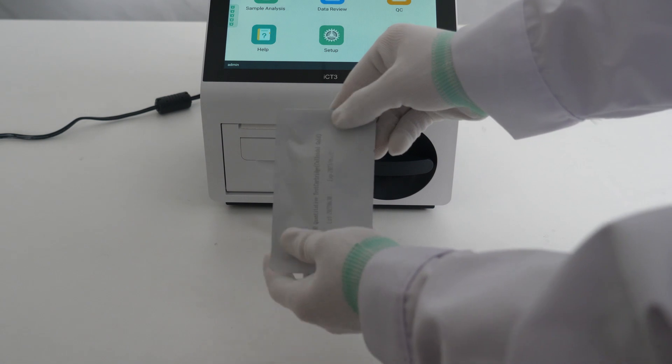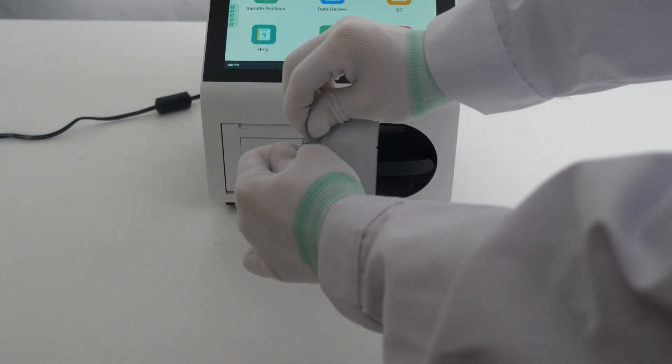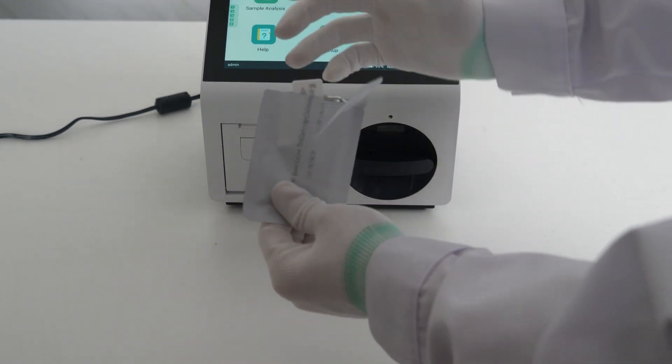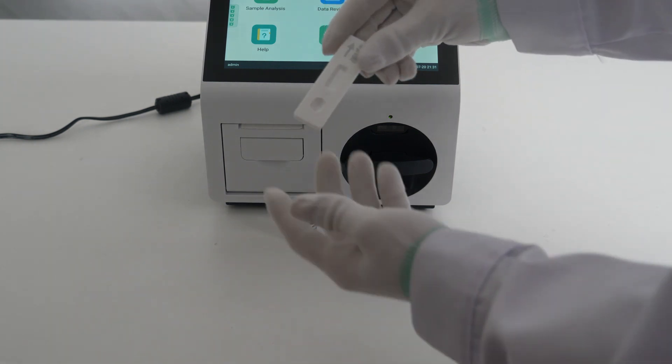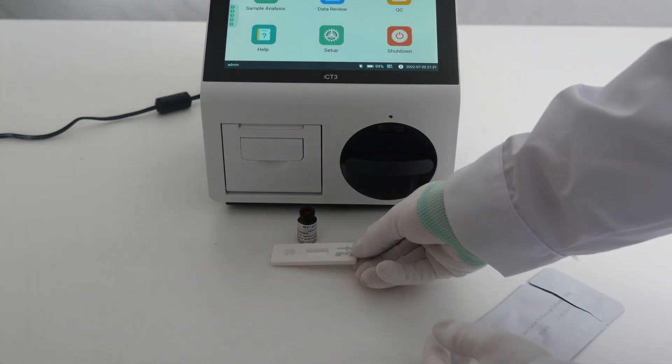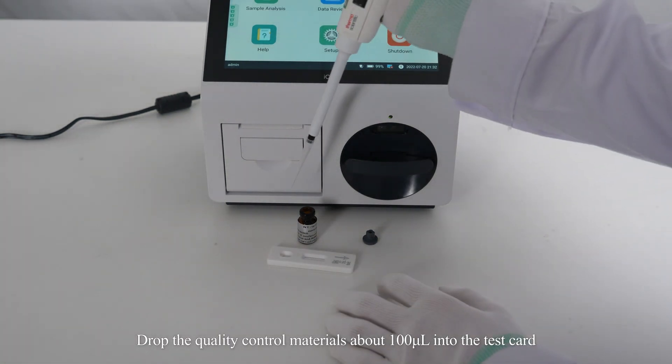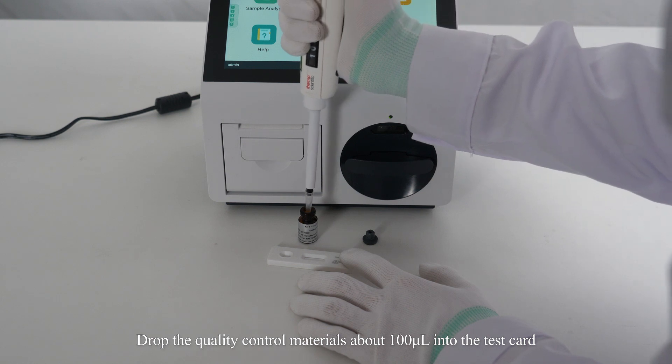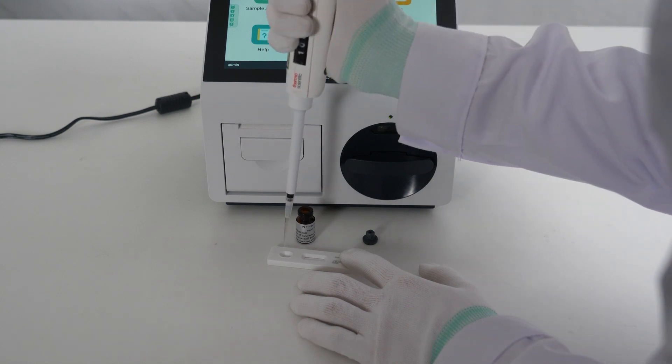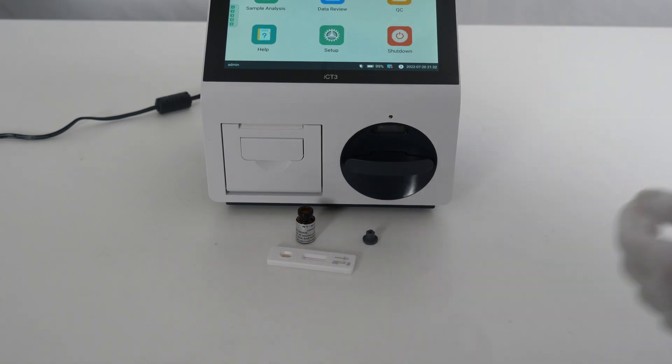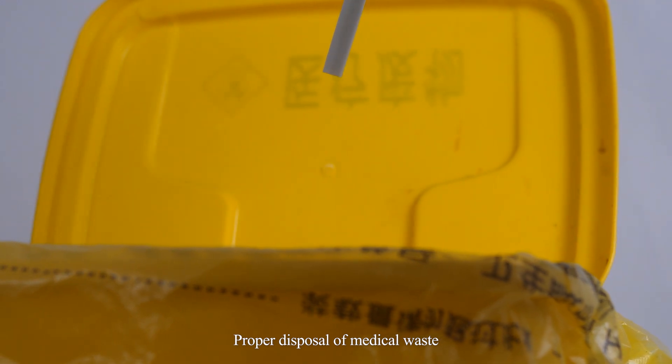Take out the test card. Drop the quality control materials about 100 microliters into the test card. Proper disposal of medical waste.